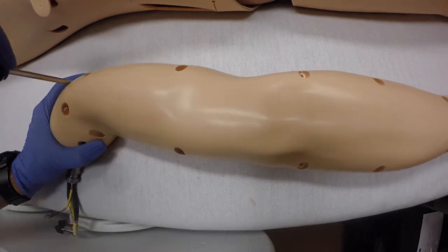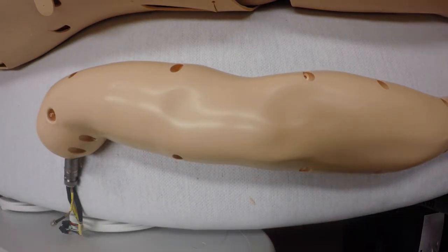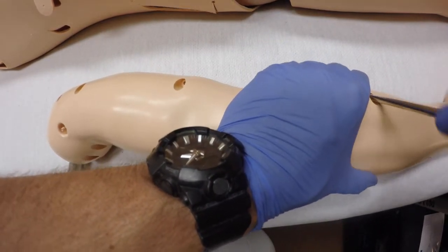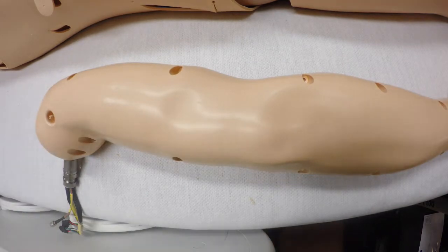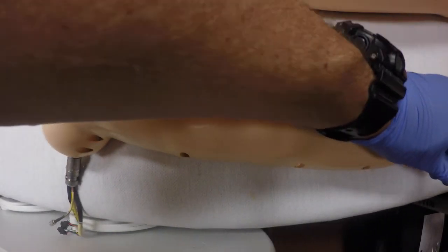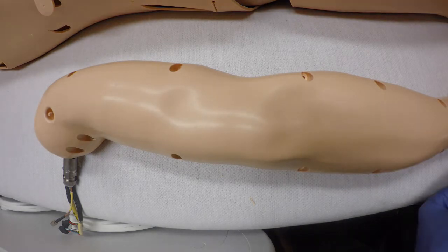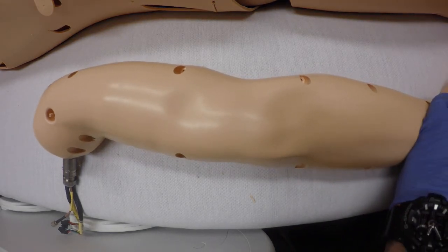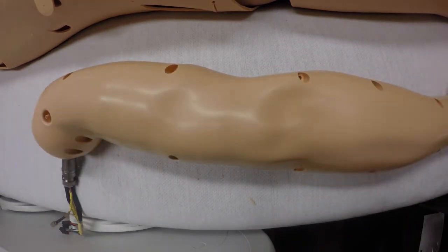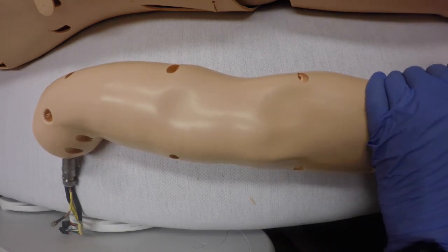I'm also going to make sure that everything works — we're going to test the arm fluid at the very end. It wouldn't be a bad idea to test how the fluid went through the arm with the casing open to make sure you don't have any leaks, because leaks inside the arm are very bad — they're several thousand dollars. I've done this probably a dozen or more times to these 3G arms. I actually do it for all of our mannequins. This one wasn't done because the arm was new and I wanted to see if there would be any improvements — it was fine for the first five months, and then started having issues.